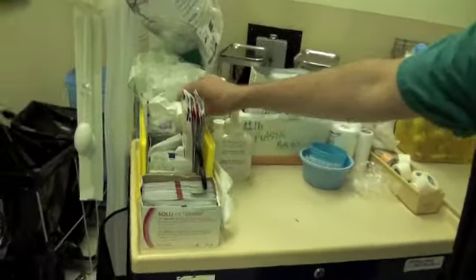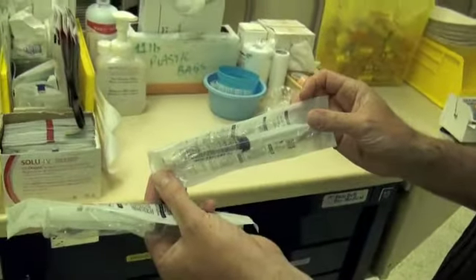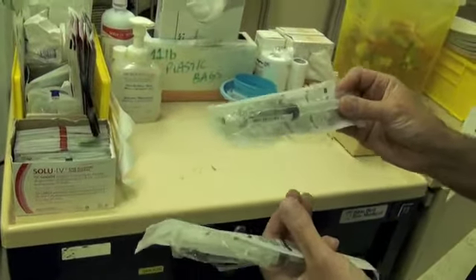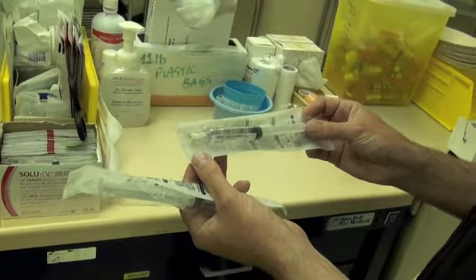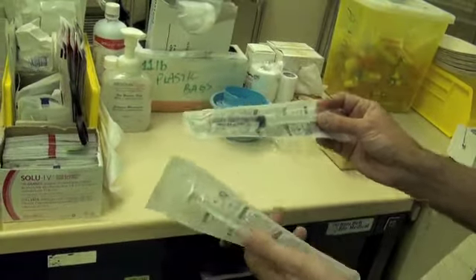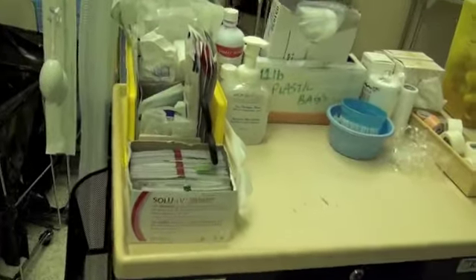We've got gauzes. We have these special saline syringes. These are 10 cc syringes of normal saline, sterile in a package. And these are used to dilute down many medications. Examples would be ephedrine, examples would be hydromorphone. With 10 cc's, you're able to dilute it down into the appropriate volume and label it and note what the concentration is. We have alcohol wipes located.